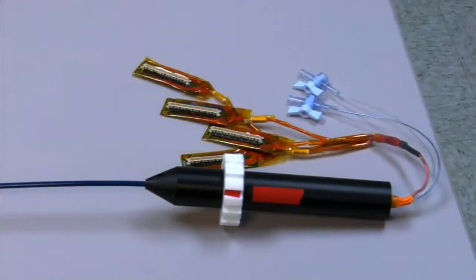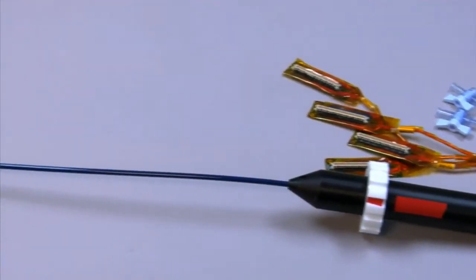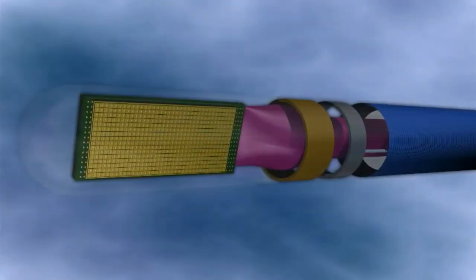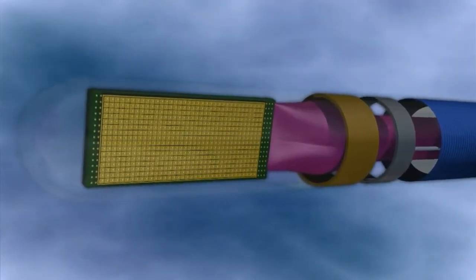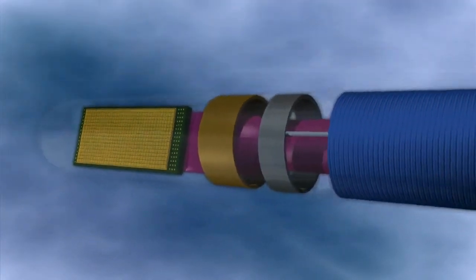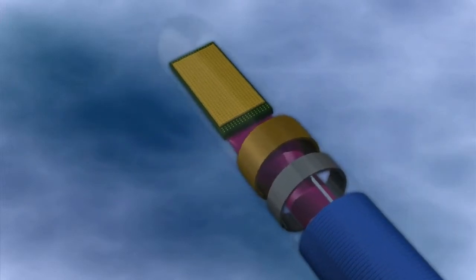LVI stands for Live Volumetric Imaging — in other words, real-time ultrasound imaging in 3D. The key to LVI is an innovative breakthrough ultrasound transducer technology developed at RTI. This enables miniaturization of the ultrasound transducer device to enable real-time 3D imaging from a catheter device.